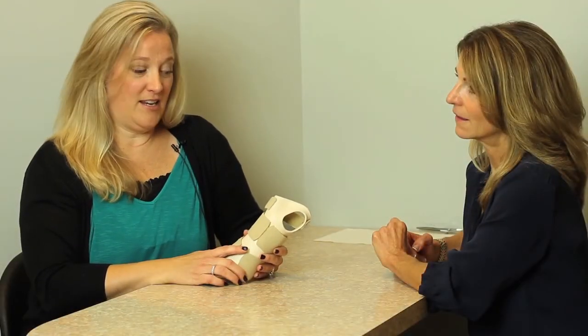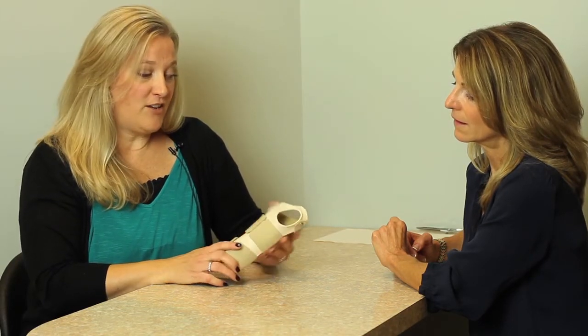The orthosis that we've chosen to use as an example is a wrist immobilization orthosis. We're going to be starting off with pattern creation. Prior to that I just want to go over some of the indications for using this orthosis.